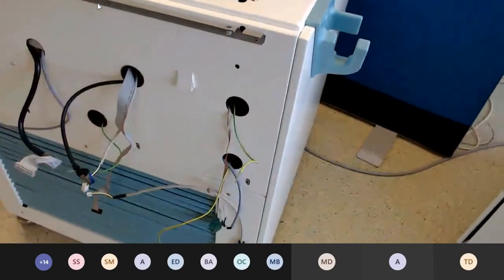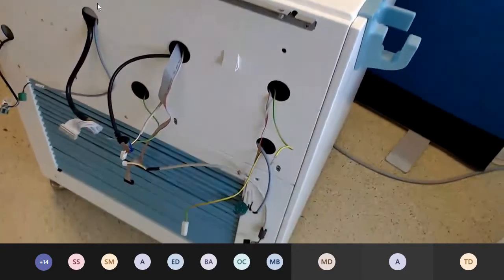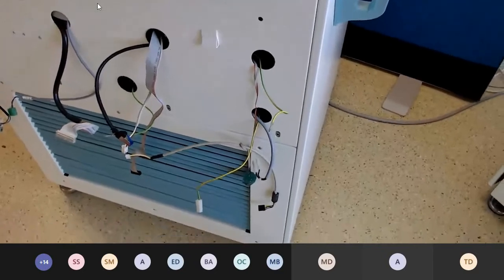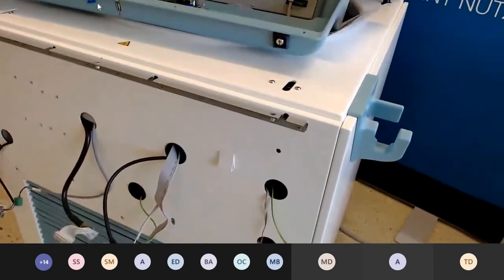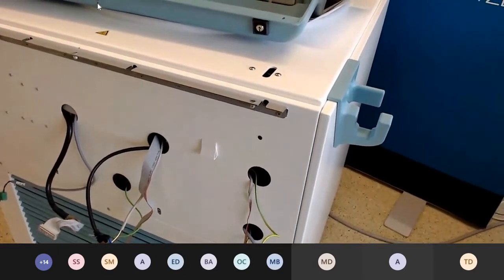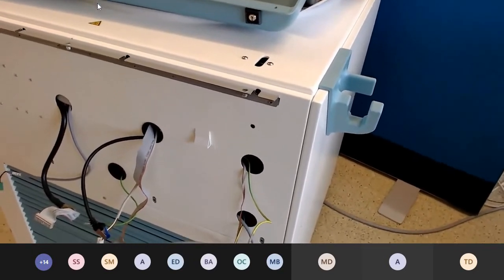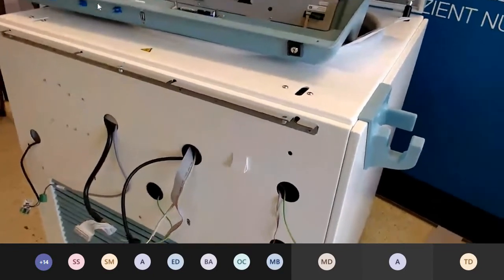So after the maintenance, please make an electrical safety test for your own and the customer's safety. In Germany, it's a regular standard. We have to do this. Please make it. The procedure of the electrical safety checks you will also find in the service manual of the Rotixa and Rotosilenta.